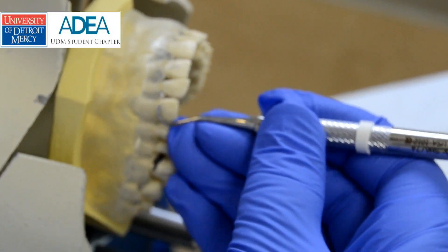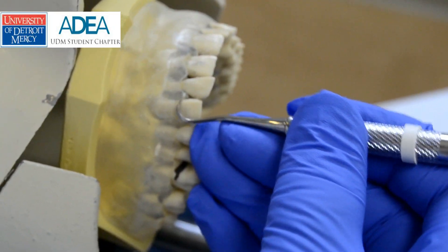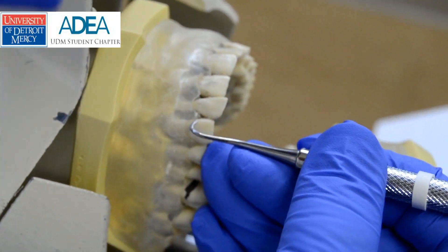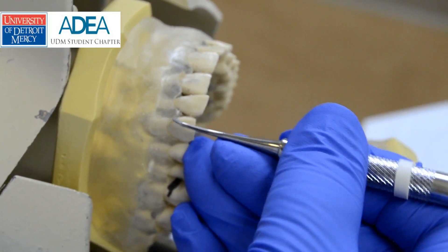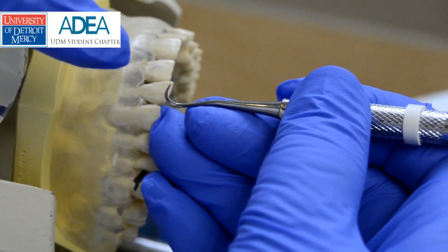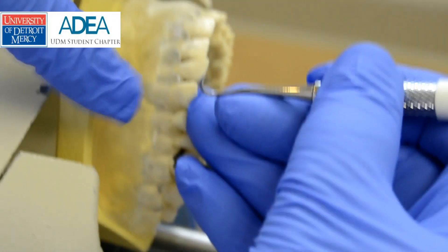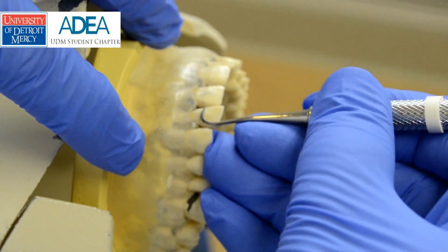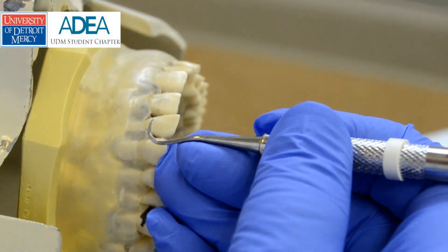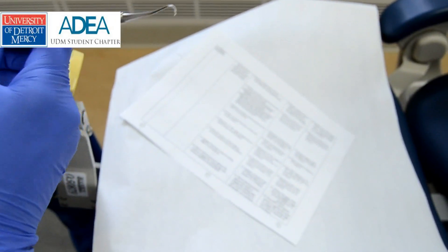When our handle is down, we should feel the blade against the tooth. Remember, lateral pressure — especially in pre-clinic for new students — is very light. We want to treat the tooth almost like an eggshell; we do not want to break that eggshell. Very light pressure. We can use the mirror in one hand and retract the lip with the other hand so we can see better. Handle parallel covers all the criteria on the criteria sheet for the skills assessment.